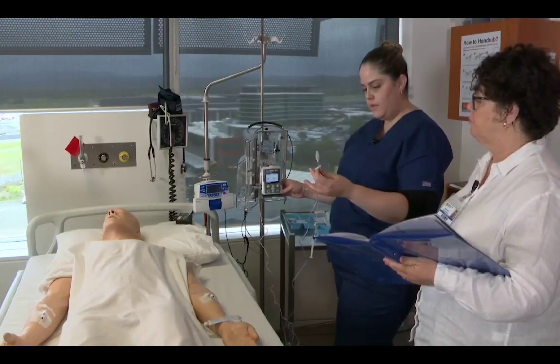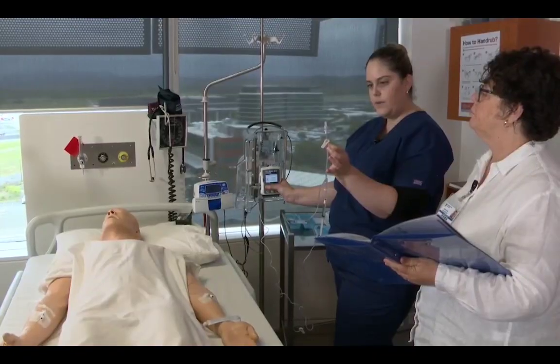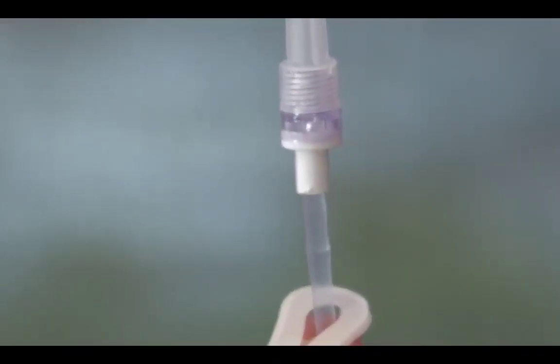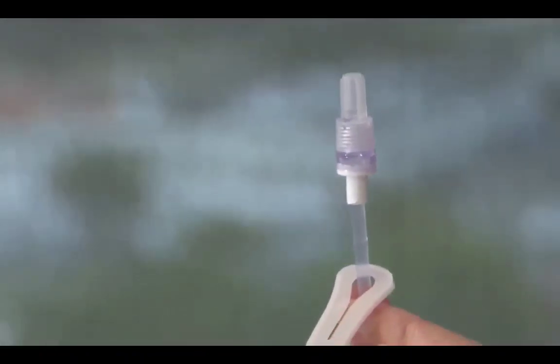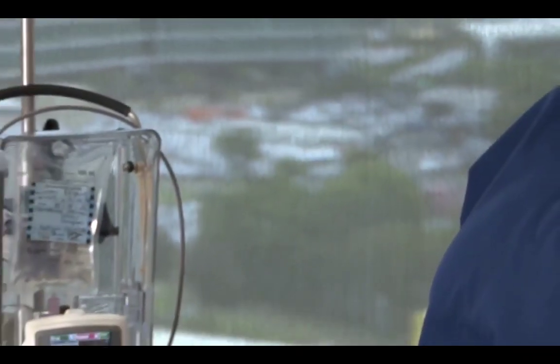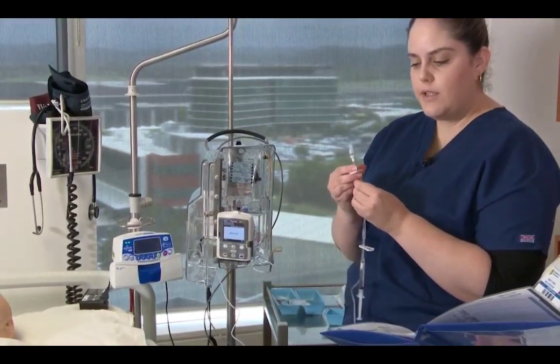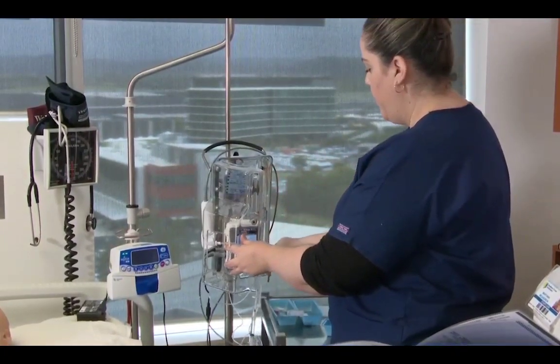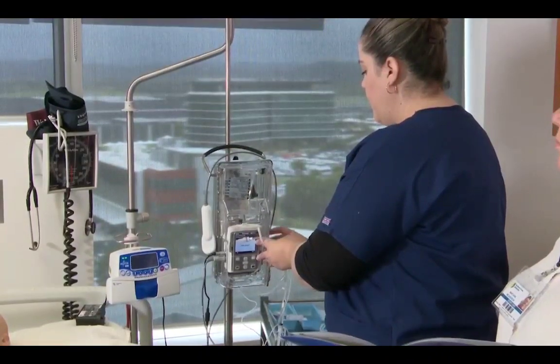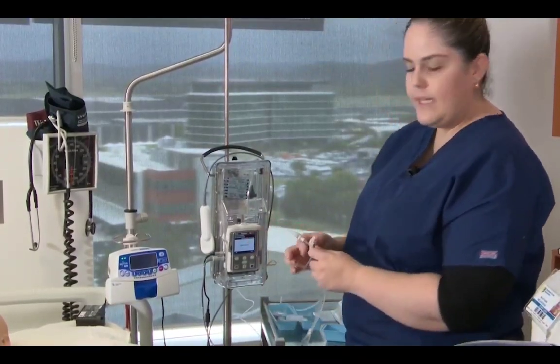And here it comes. And then once it gets to the end in the cap, I'm going to wait for the fluid to hit into the cap. Here it comes. I'm going to press stop prime. Okay, and that took 4 mils. Continue priming, no, because we've primed that to there, but I am going to clamp it just at the end because I always do, it just makes me feel safer. Safety. I'm now going to lock the pump to make sure I don't forget to do that. Using the lock on the side there. And now it's ready to start once I'm ready.